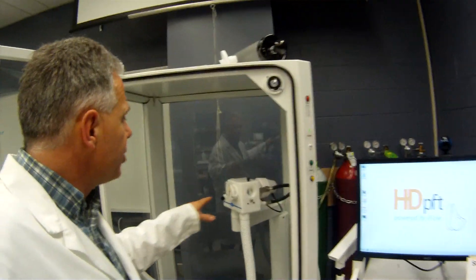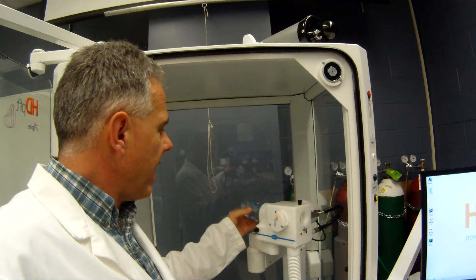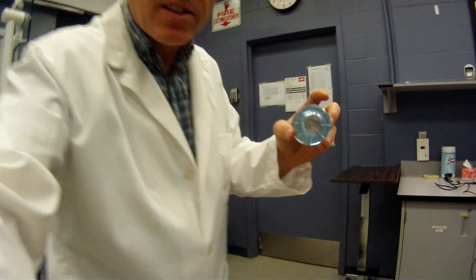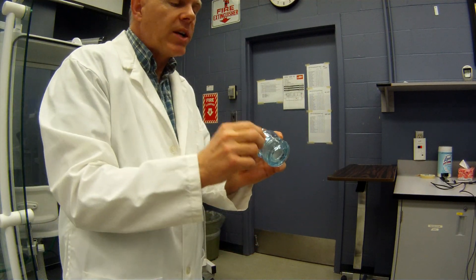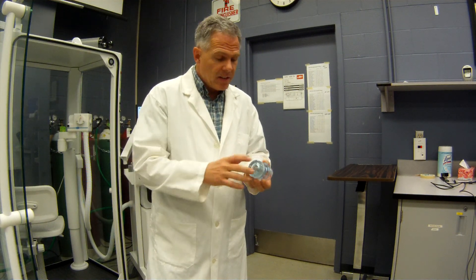The heart of this unit is right here — this is our pneumotach. The way this one works is that we have a screen-type pneumotach. There's a little screen inside there and these little holes across here. What this unit does is it measures the pressures across this screen and translates those pressures into a flow. And if we know the duration of the flow, calculated probably about once every millisecond with this device, we can measure the volume.